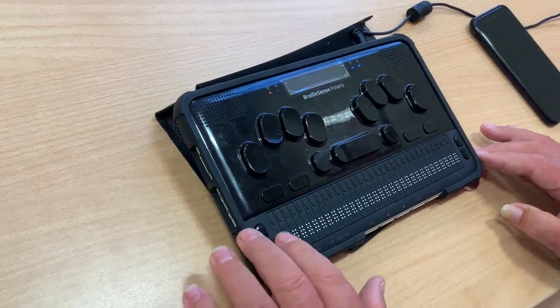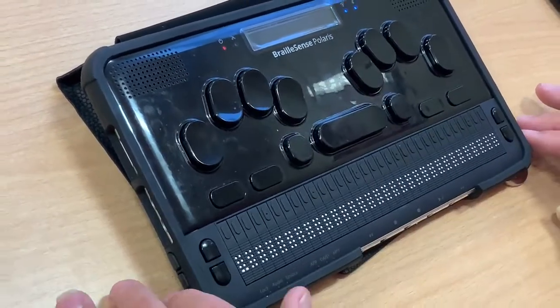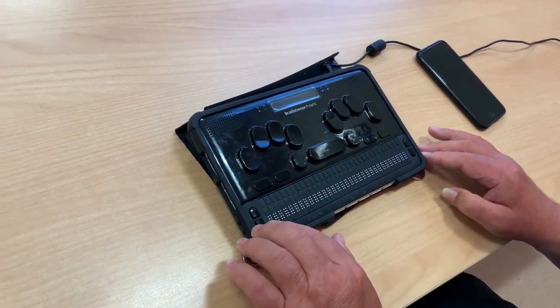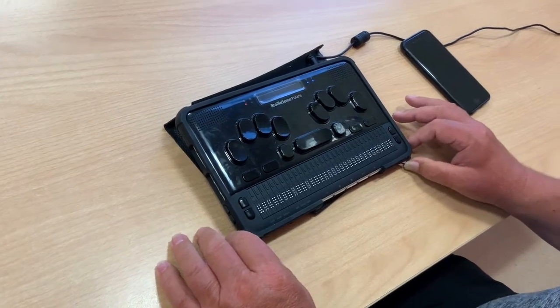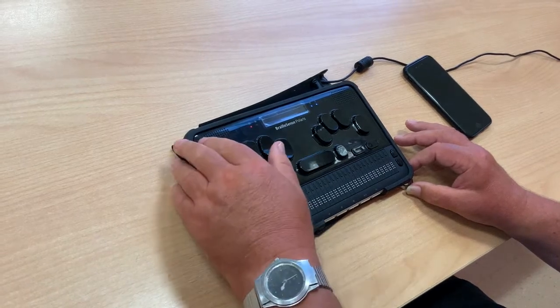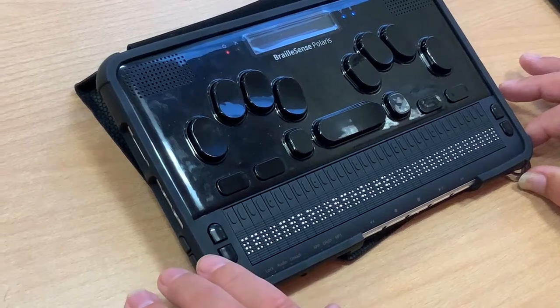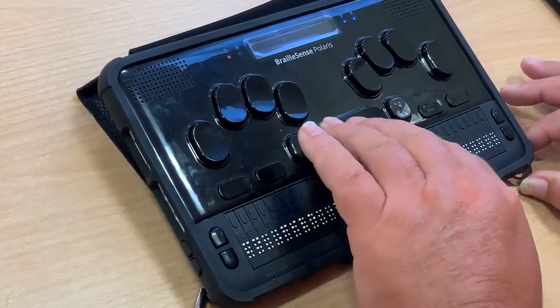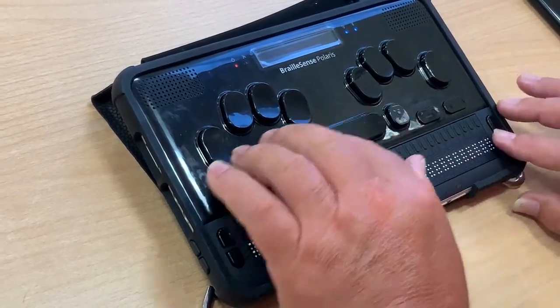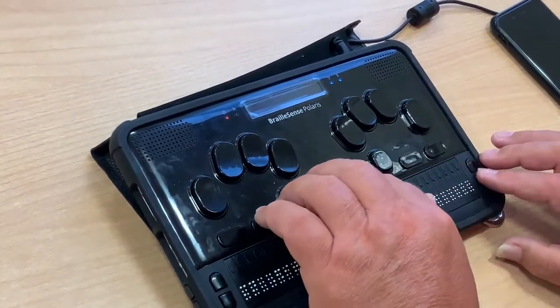I've entered the Word Processor. I'm at the top of the document with no text input, so the braille display is empty, but the voice confirms I'm in the Word Processor. If I want to access the menu options from within any application on the BrailSense Polaris, I can press F2. That brings up the menu options — I can navigate through File and Edit pull-down menus.